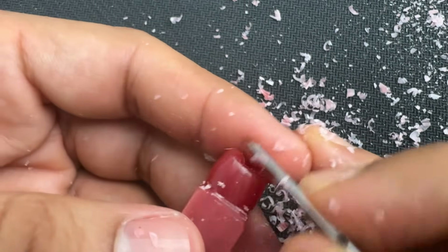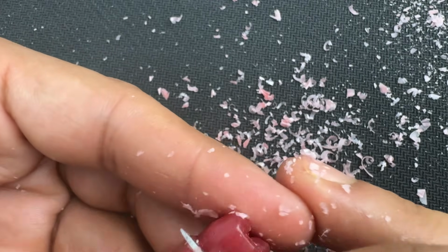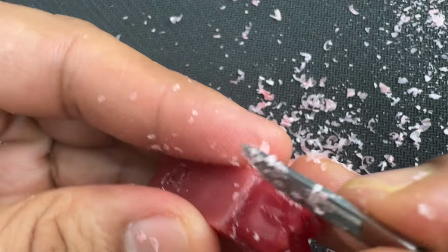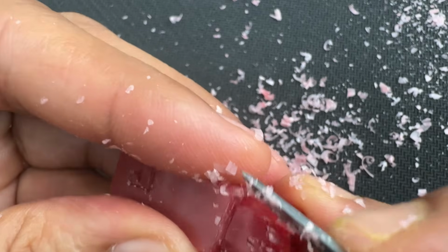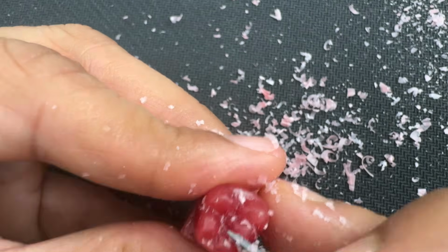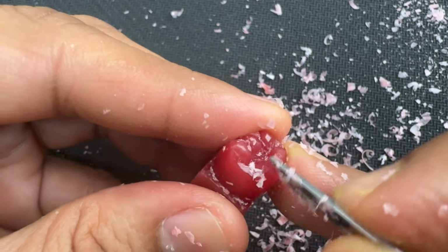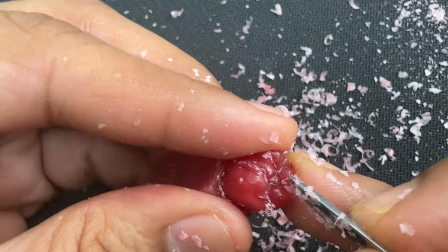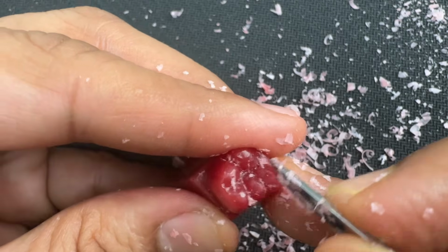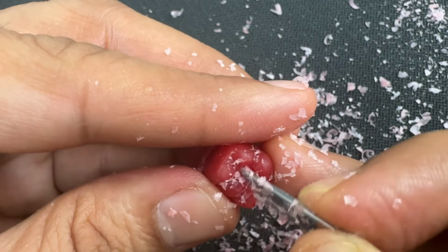So I'm just rounding off the line angles. Lingual cusps are sharper, taller, so you can keep them taller, whereas the buccal cusps are a bit blunt when compared to lingual cusps, so you can just round them off more.